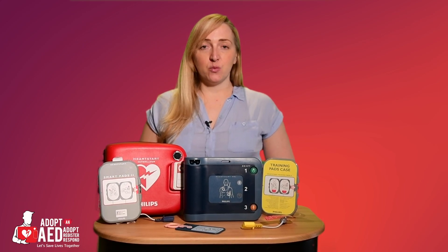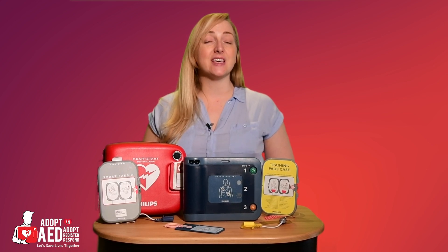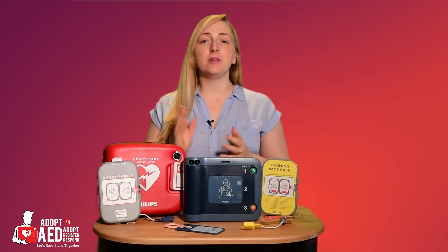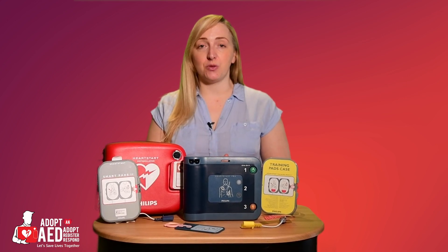Did you know, in 2019, over 65,000 people in the UK suffered an out-of-hospital cardiac arrest, with the current survival rate as 1 in 10. With this in mind, various programmes are being introduced where automated external defibrillators, AEDs, are being placed throughout the public domain with the goal of making AEDs more accessible to everyone in an emergency. The problem is that people are often too afraid to touch an AED as they've never seen one before, let alone deal with an emergency situation with one.